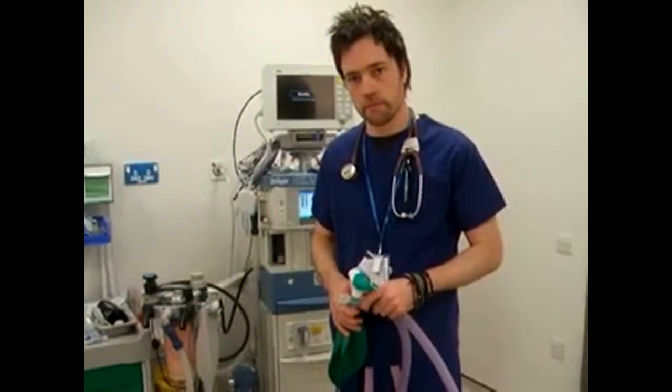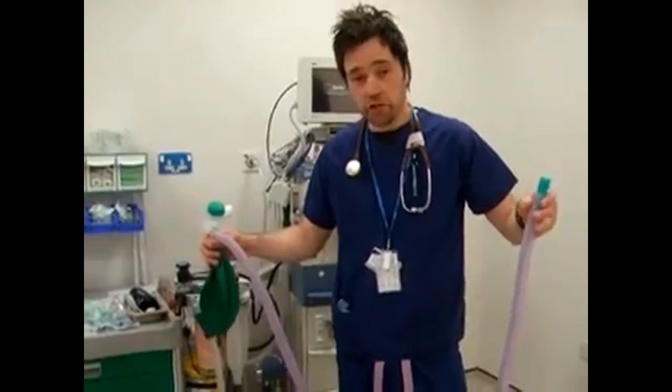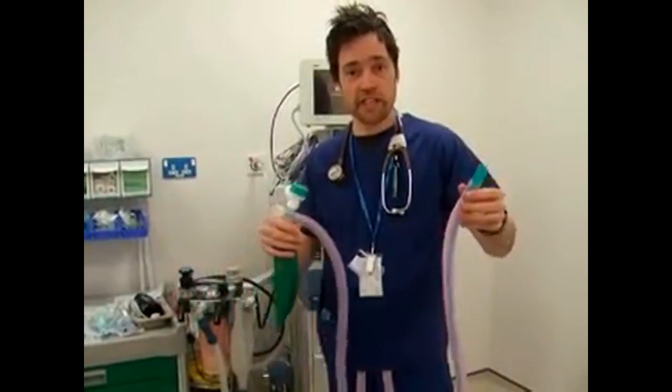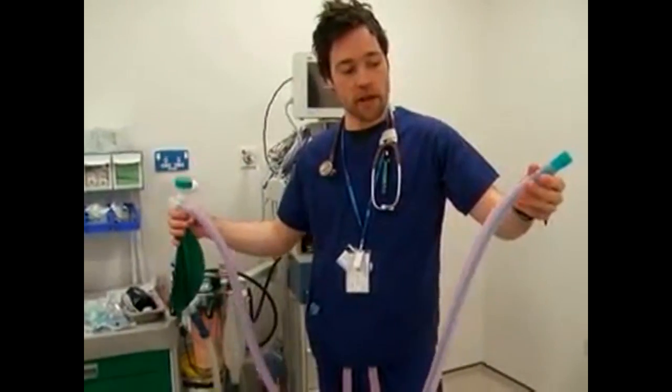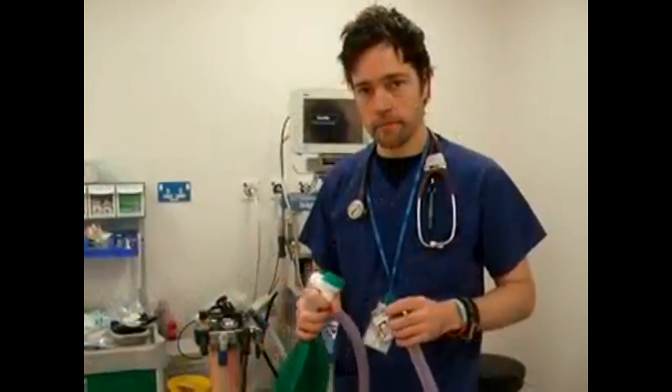And can you tell me why the fresh gas flows are less for controlled ventilation? That's because in controlled ventilation there's a longer expiratory pause, so that it doesn't need as long to fill up the space in the outer tubing, which is where you breathe in from.